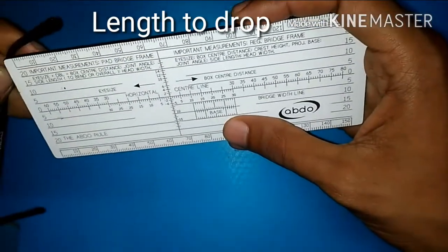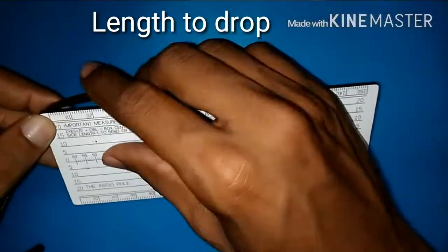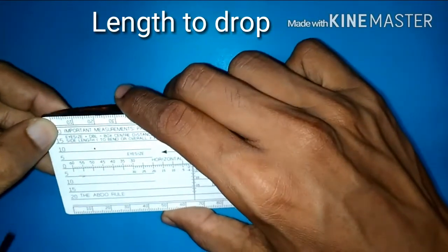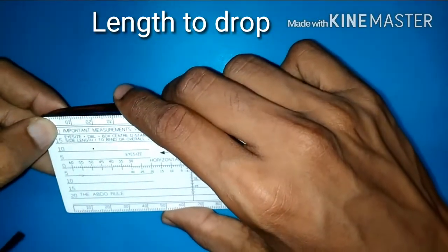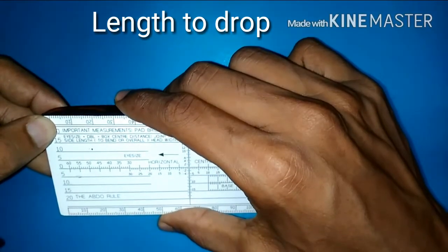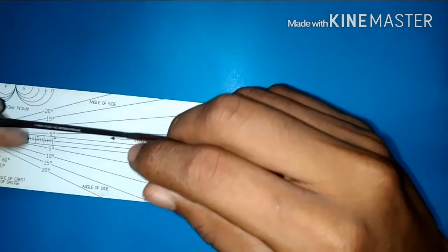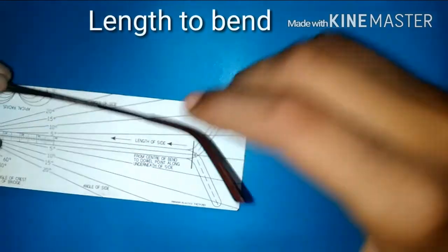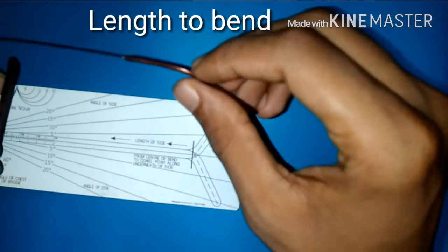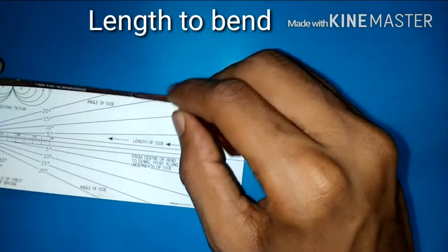Drop is the distance from the ear point to the extreme end of the side. To measure that, place the ear point along zero and then measure the extreme end where it bends. For this frame it's around 35mm.